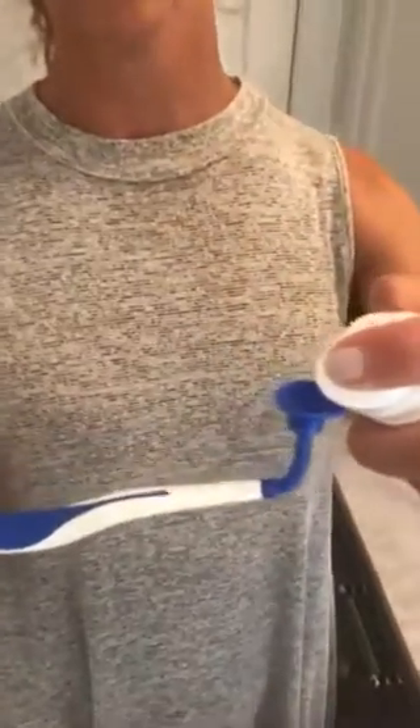Looking at it as an applicator for Stella Life, I think either the MouthMate circle could work well. Each tip has a nice bendable, patented handle so the patient can customize the fit, and a really soft tip. The tip is slightly concave so the gel just stays right in place, and the patient can apply it right over the wisdom tooth area with a gentle tapping motion.